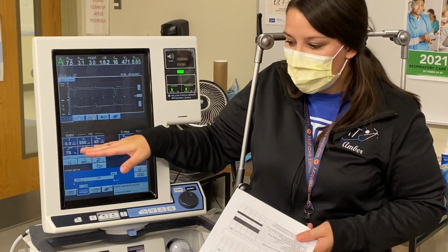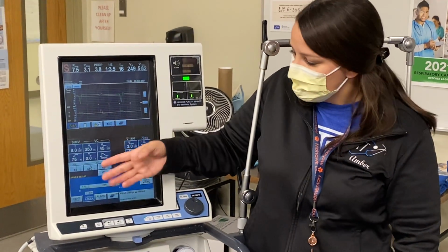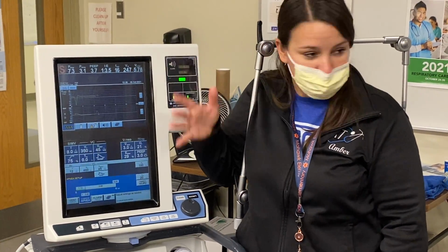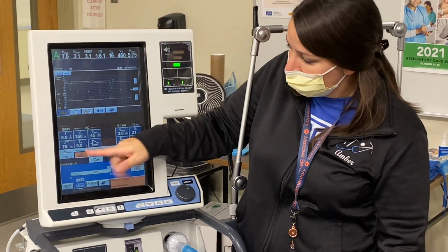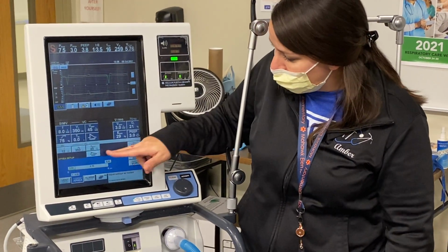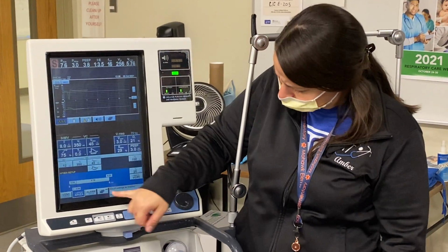Well, if you have a rate of 8 or 6, you're not going to want that as an apnea setting. So I told the group this morning, normal respiratory rate is 10 to 20. As long as you put that within an acceptable range for a normal respiratory rate, that will be acceptable. Match your tidal volume, and then match your flow, and that will be acceptable for your apnea.